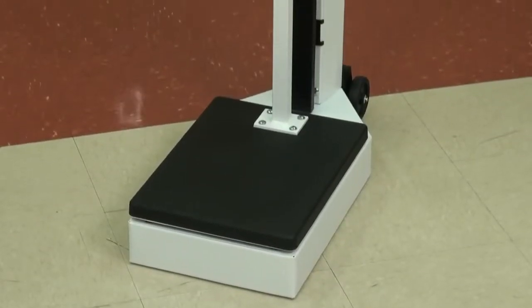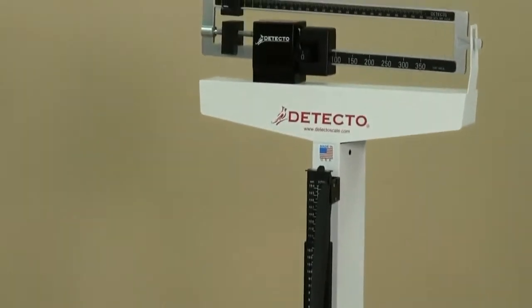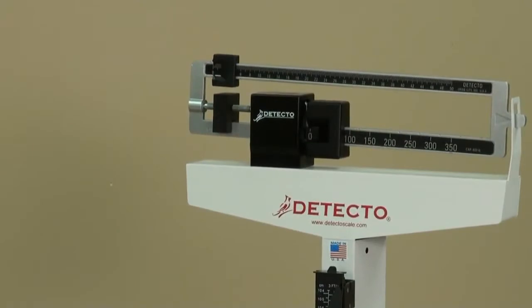Heavy-duty, solid, stable bases constructed from mild steel and coated in an electrostatic powder finish bring a level of quality that is built to last.